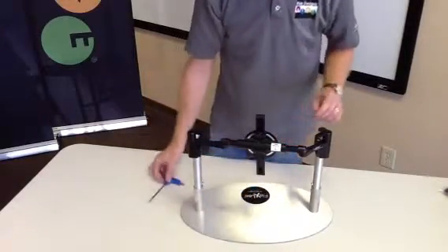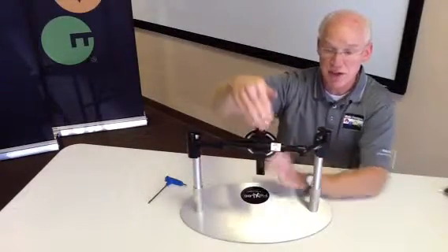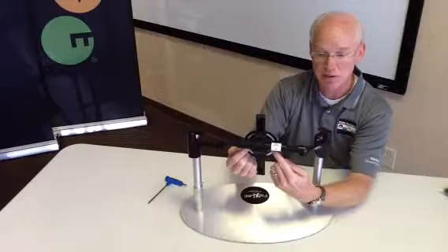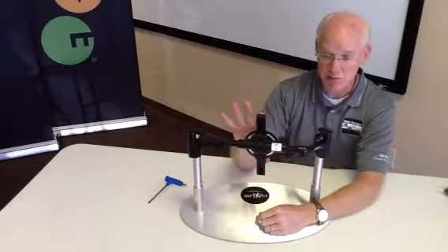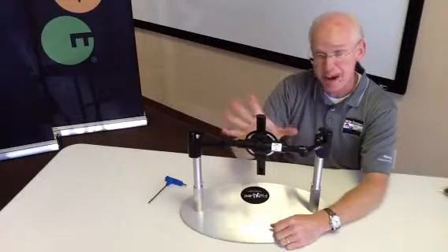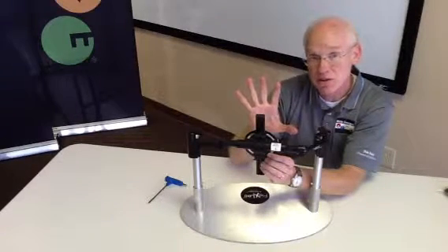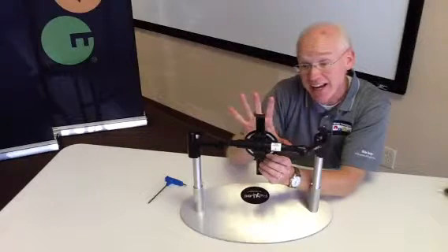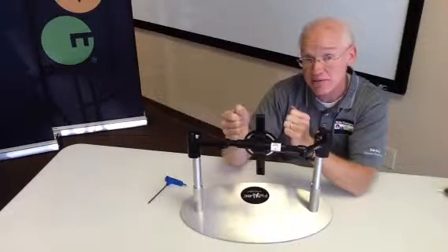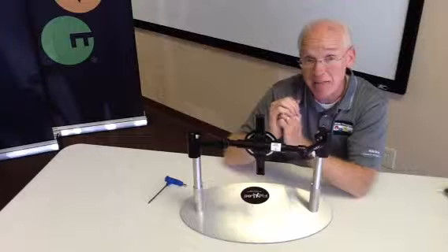There are four adjustments I've made: height via the clamps on canes or center position; depth and vertical rotation via loosening the pivot screws and the width adjustment screws accessed from below; back angle and lateral position through the center clamp. The final axis — rotation of the back in this manner — is done through four 10mm head bolts that mount the Ride Custom Back to the flex lock. Simply loosen those four bolts and that allows you to rotate the back in this fashion.